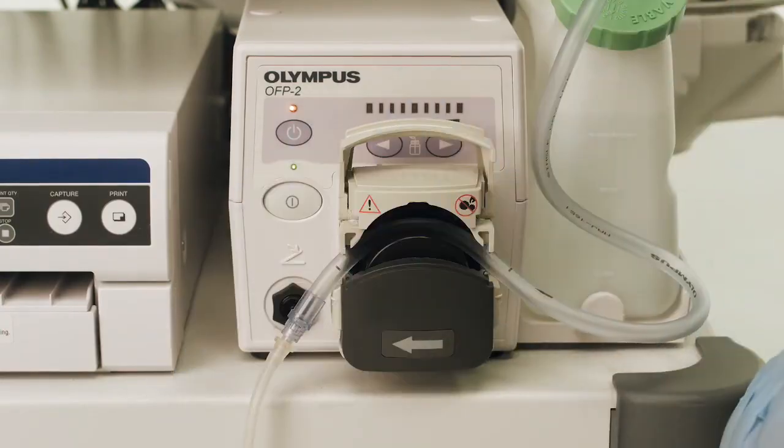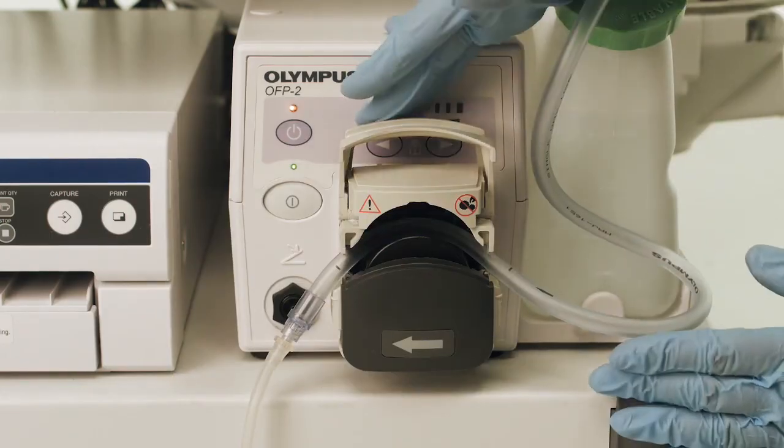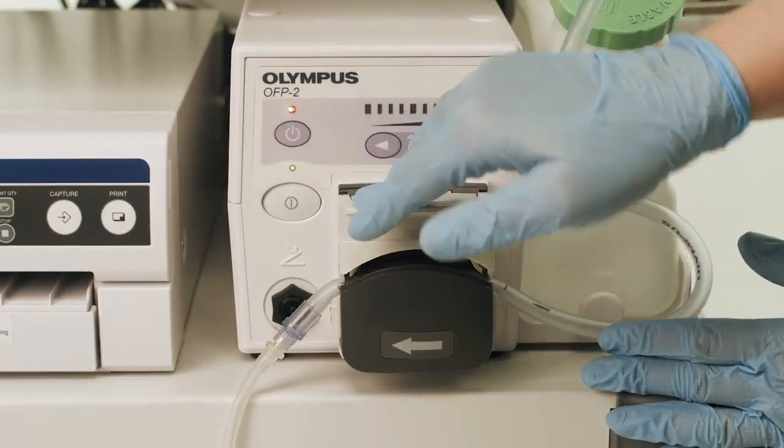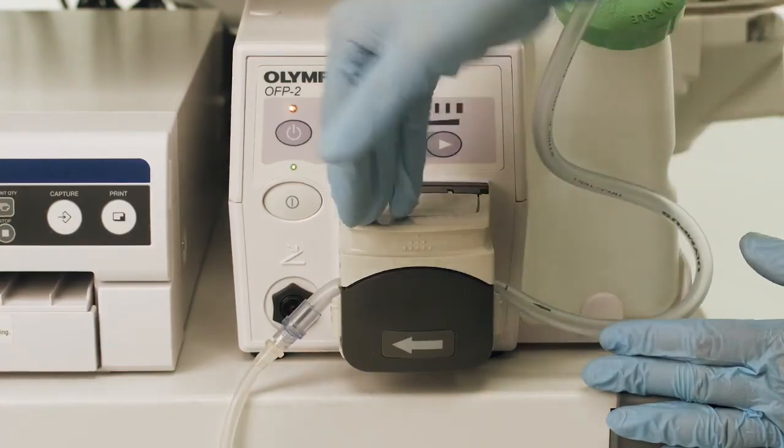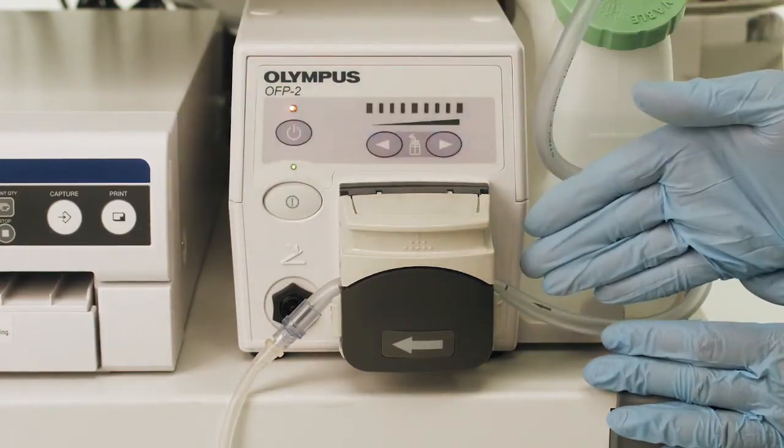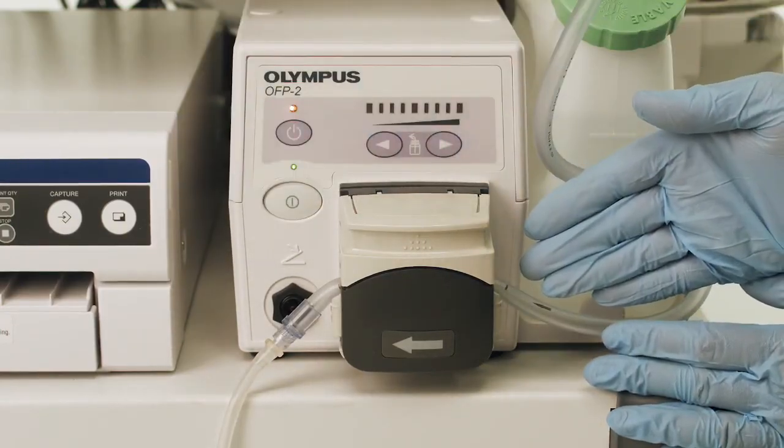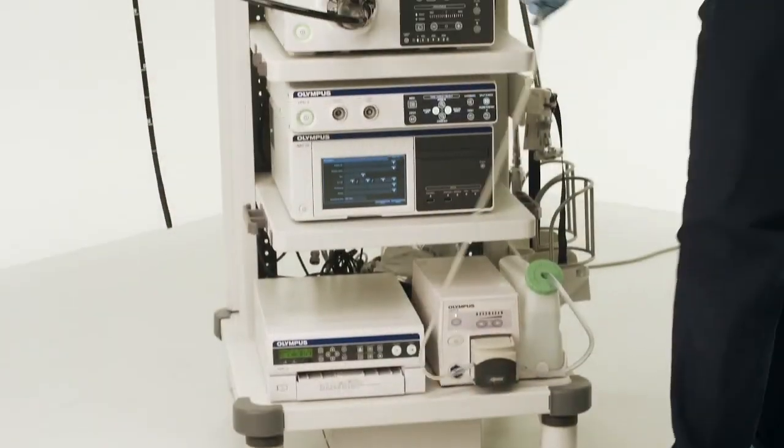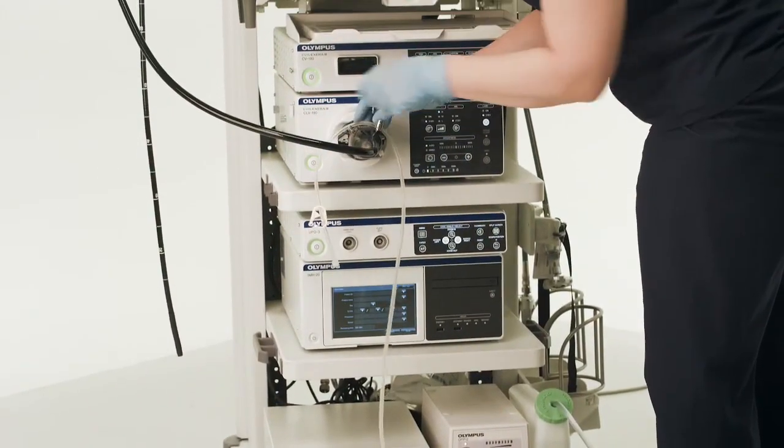Release hold of the inserted tube and allow it to relax to a natural position, and then close the pump head lever ensuring that the tube is fully retained and not pinched at the edges. Rest the clamped end of your tube set above the pump.